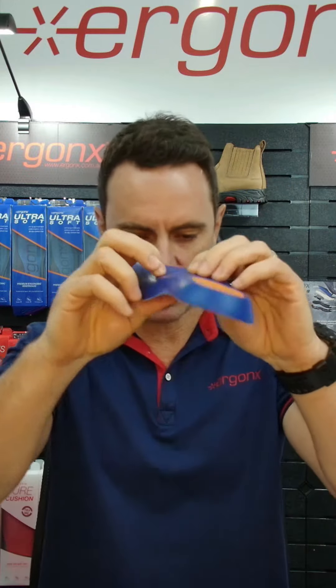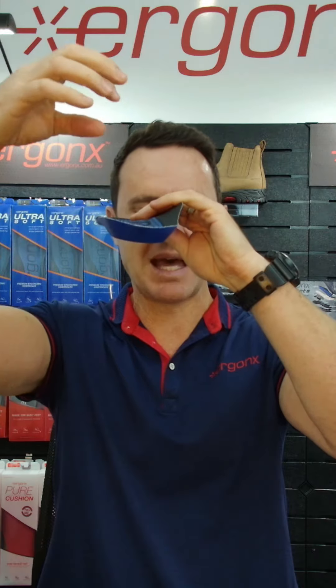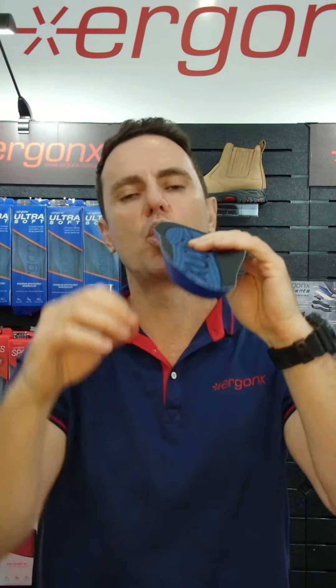The other thing we look for is that it should be soft but not too soft, firm but not too firm — like anything, there's a real balancing act here. And it should have a nice deep heel cup to help keep the foot's natural fatty pad underneath your heel, which will further cushion your foot.